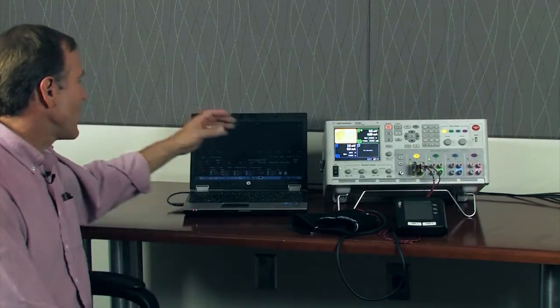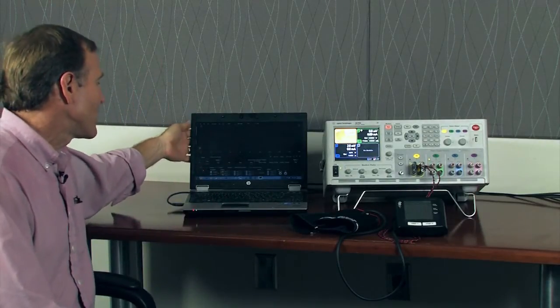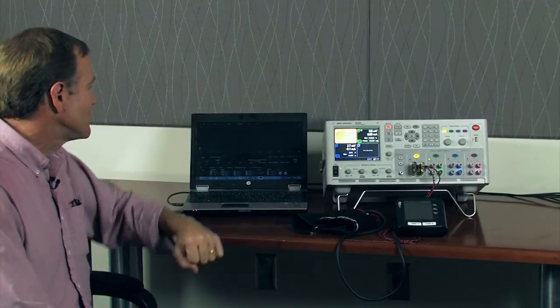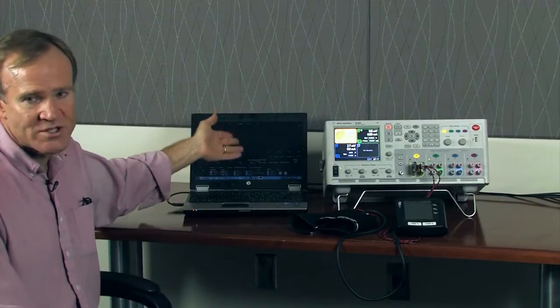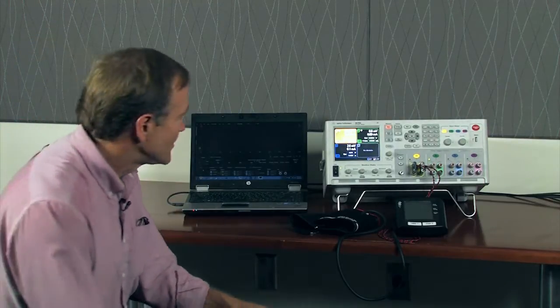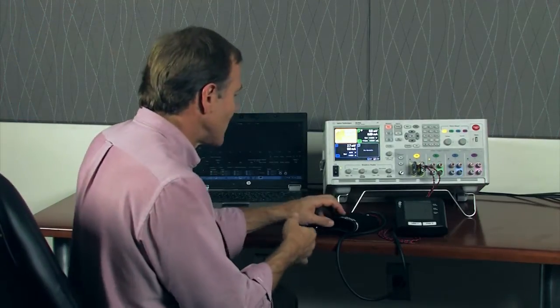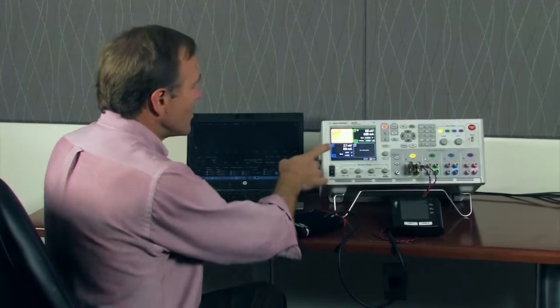And then finally we have our software that's controlling the system and going to be presenting the information that will give you that additional insight. So let me go ahead and turn around and get started.